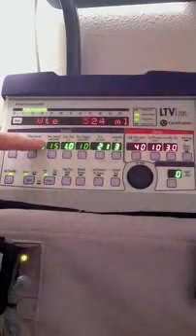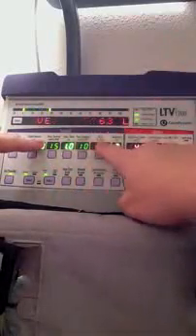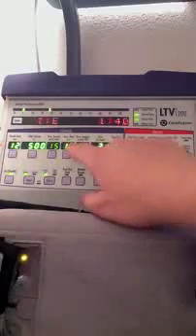It gives me a rate of 12, tidal volume of 500. You can see that this is really bright here, and this is bright, and this is bright, but this is dim, and this is dim here.